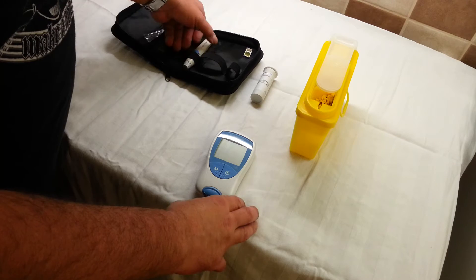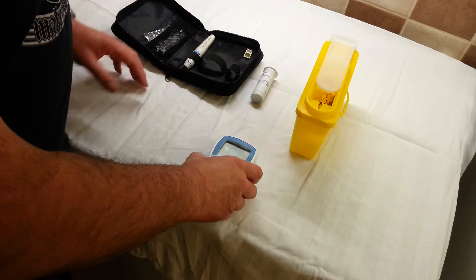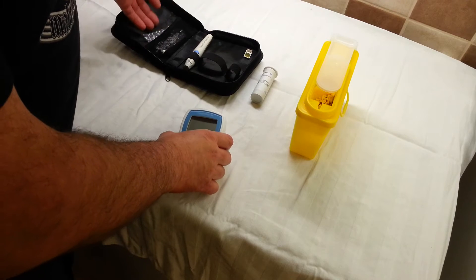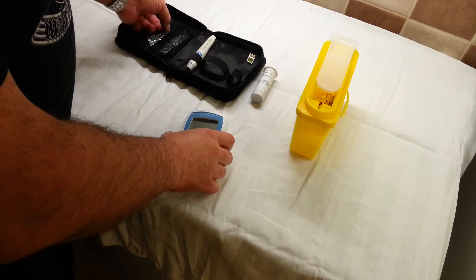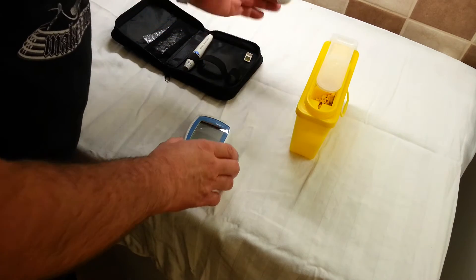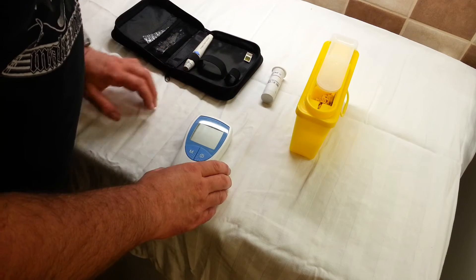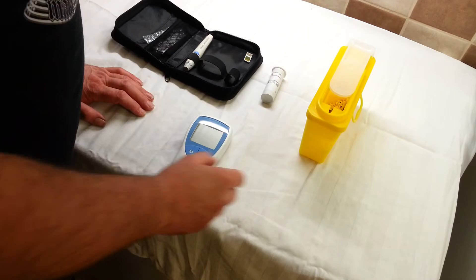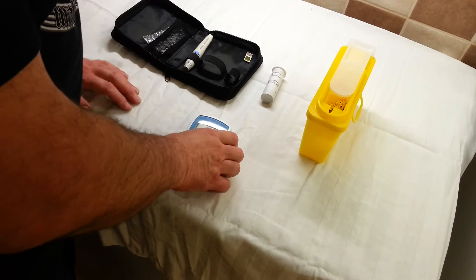The way the system works in my area, I have to purchase the hardware, which is this, and I have also purchased my own sharps. The doctor then provides the strips on prescription, and the warfarin clinic will provide me with a sharps bin for afterwards.